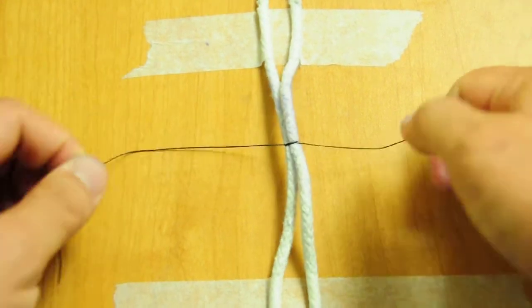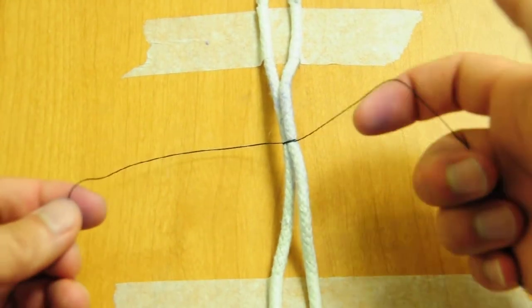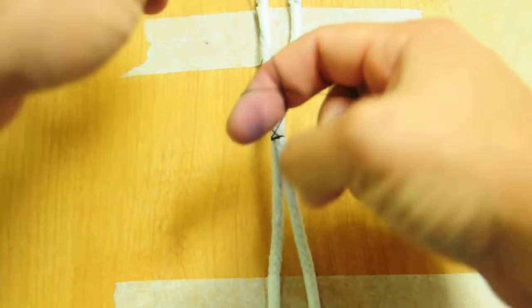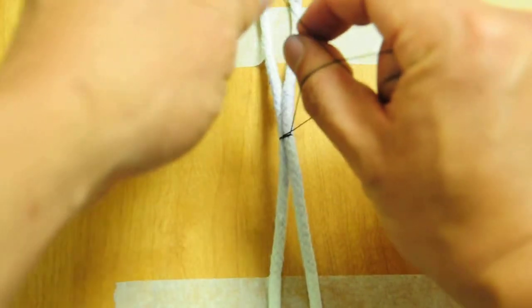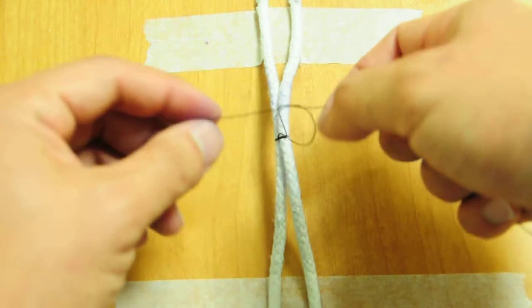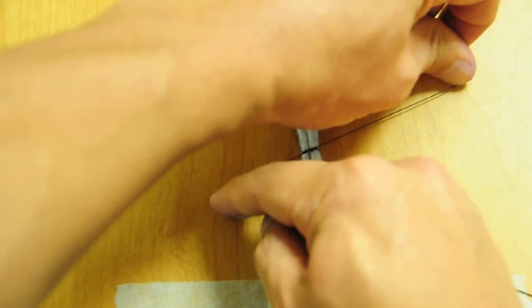Okay, so those were thumb throws. Now I'm going to do index finger throws, so same thing. Over, make a loop, circle, come to the other side, grab it, and then again, cross your hands for nice secure knots.